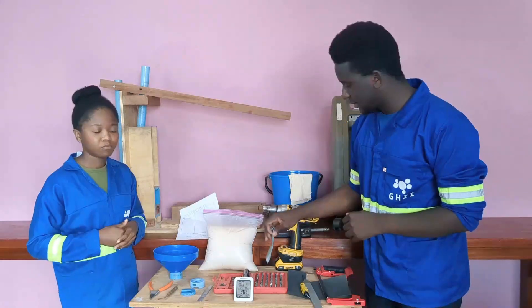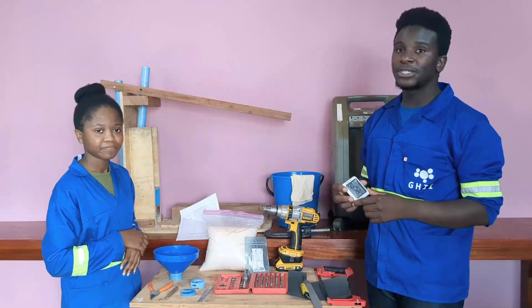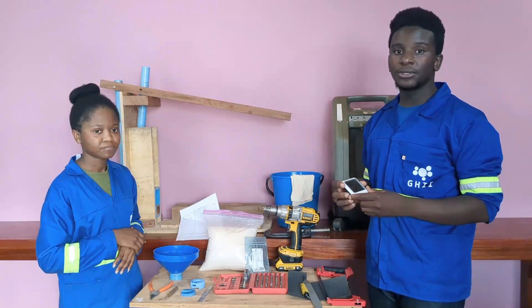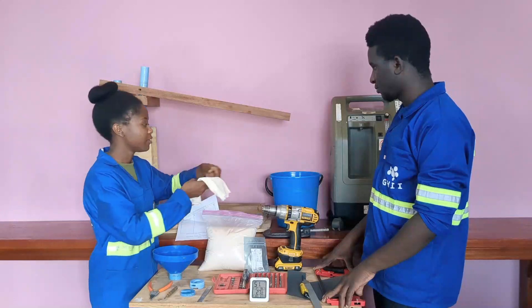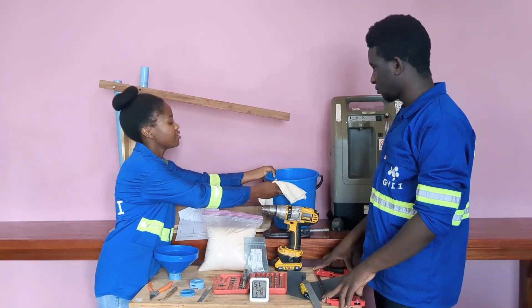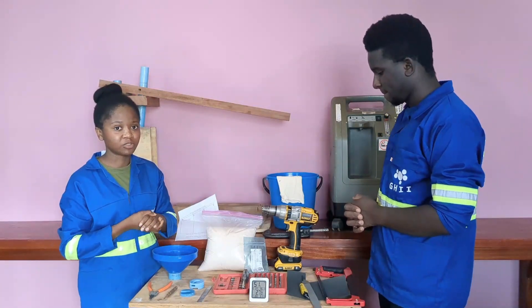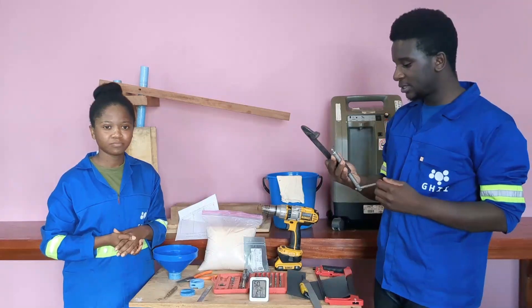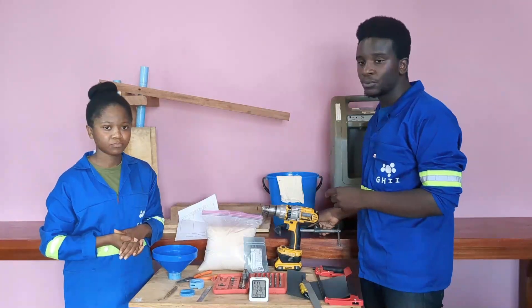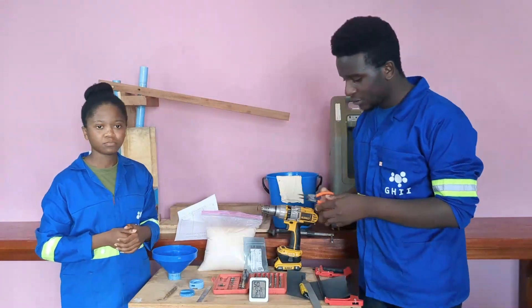You'll need these self-tapping Phillips screws. You'll also need this humidity-sensing device in order to check for the humidity in the room where you are replacing the zeolite. We are also going to need a towel and a bucket of clean water — these are used for cleaning the O-ring, to make sure that no part of the O-ring is damaged when cutting the sieve beds. You'll also need this C-clamp, which will be used on one of the jigs to hold the sieve bed in place. And last but not least, you'll need this needle nose plier to remove the filter that is in the sieve bed.